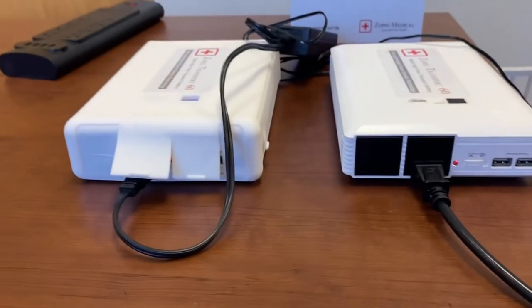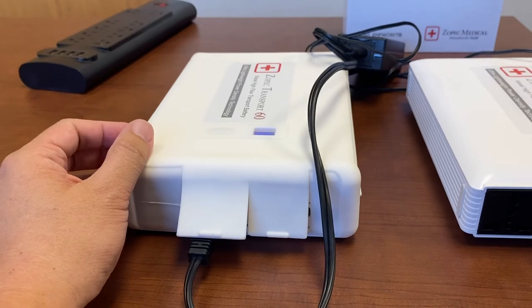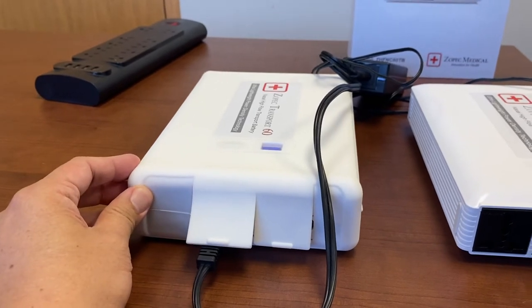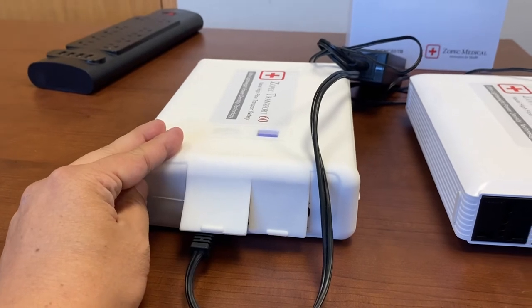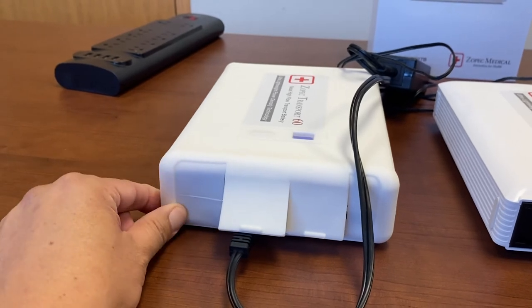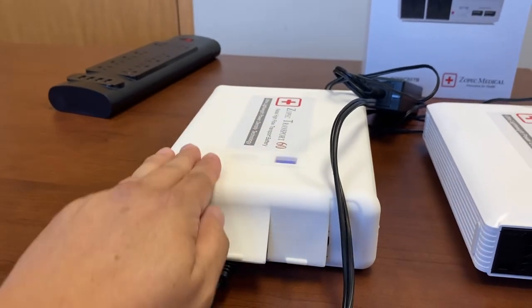Notice that this battery has a silicone battery case, which is optional. The silicone battery case is IP22 certified, which means it provides water ingress protection, dust protection, and drop protection thanks to the very thick silicone on the sides. It's also a lot easier to clean and disinfect.